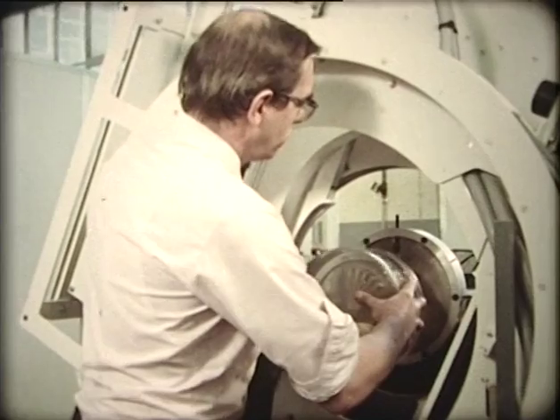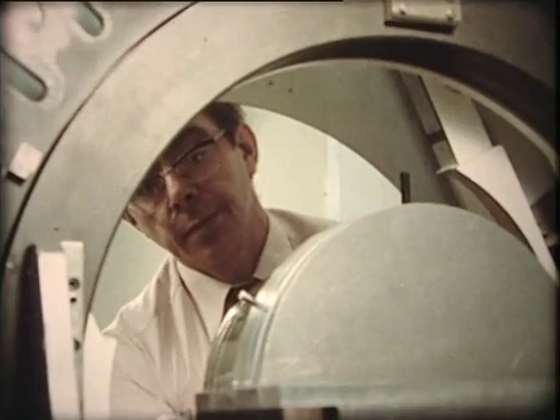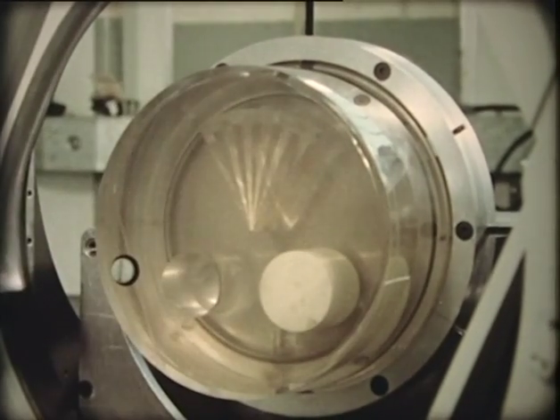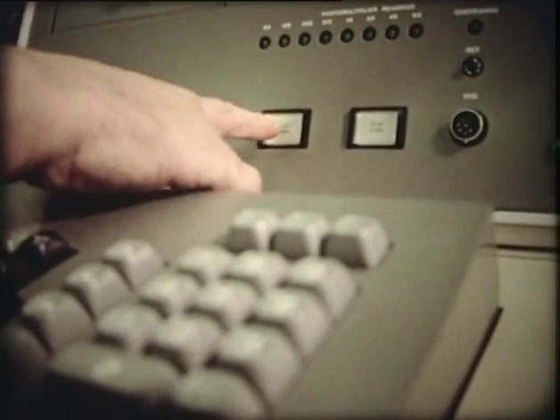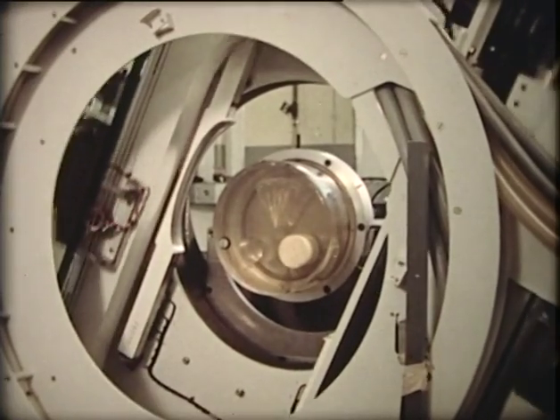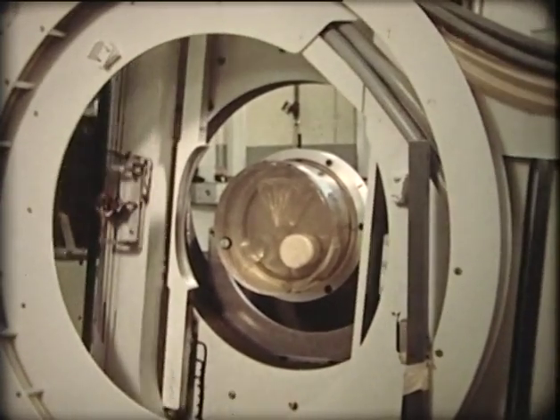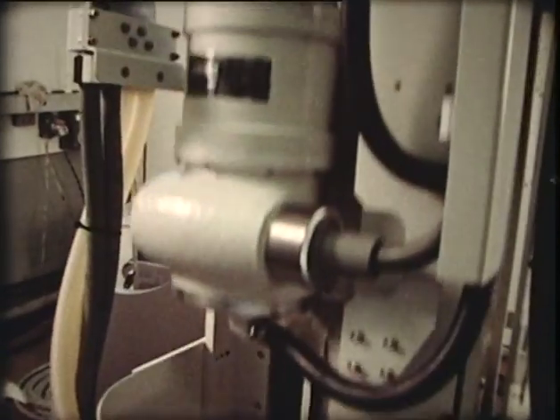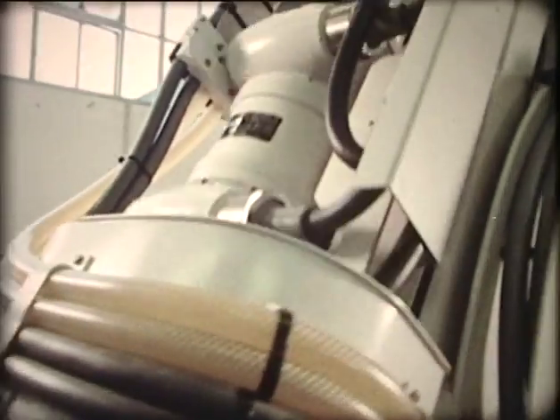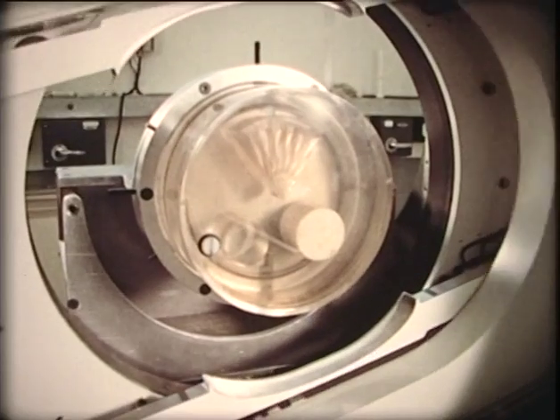Each machine is tested for eight days. A disk of plastic stands in for the future patient, simulating the full range of densities found in the human body — from the lowest, the air trapped in our lungs, to the densest, our bones. The machine is so sensitive that it will distinguish tumors from surrounding healthy tissue. A fine beam of X-rays rotates around the patient, giving a quarter of a million readings in each picture, able to identify tissue density of areas no larger than a pinhead.